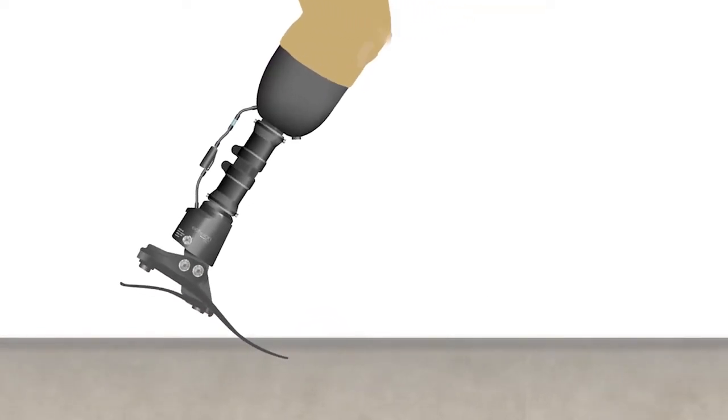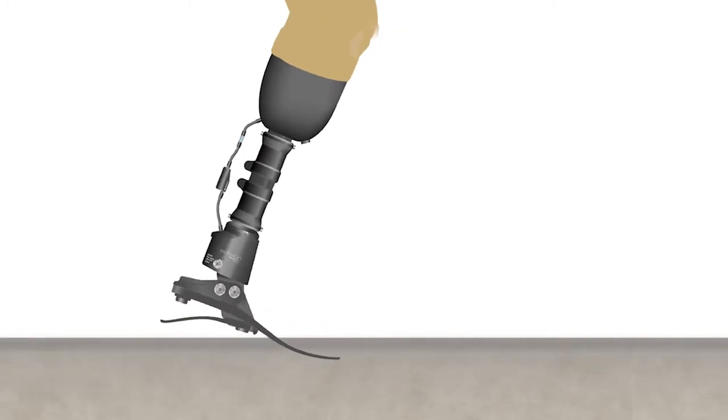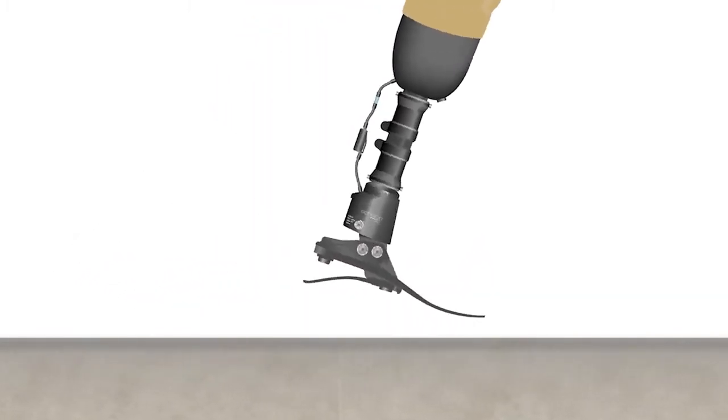Echelon continuously self-aligns, adapting to different terrains, fine-tuning the ankle position for smoother, easier and safer walking, minimizing socket pressure for greater comfort.